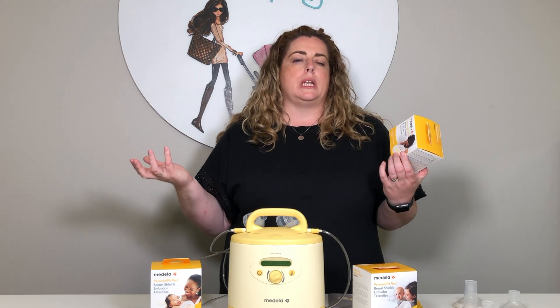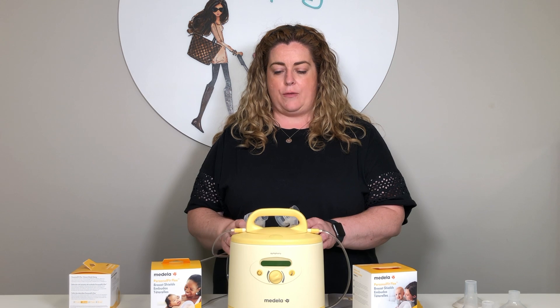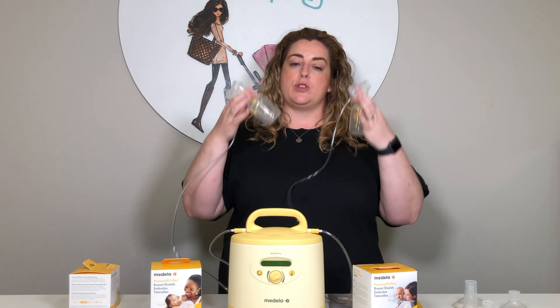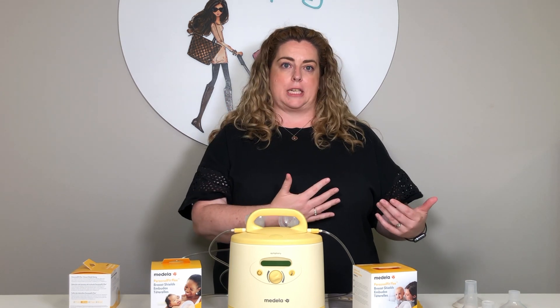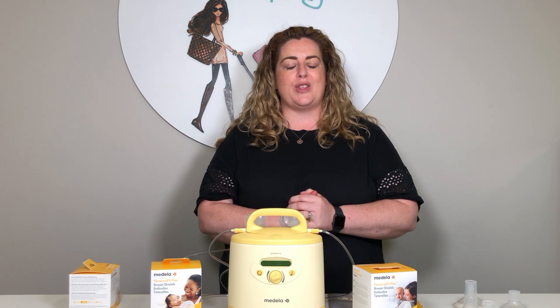We would typically recommend just having two pumping kits. For instance, if you are renting the Symphony, you can buy two of the pumping kits so you have two of everything — meaning you're not having to wash after every use and get it all prepared for the next time. It's just a little bit of a time-saving and energy-saving tip.